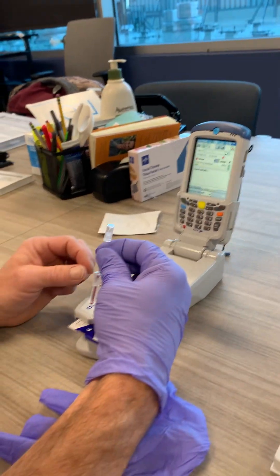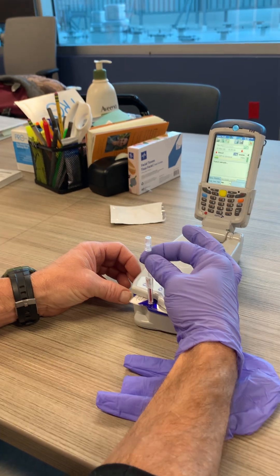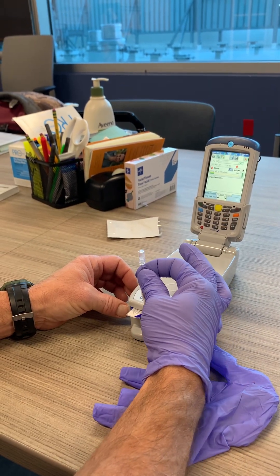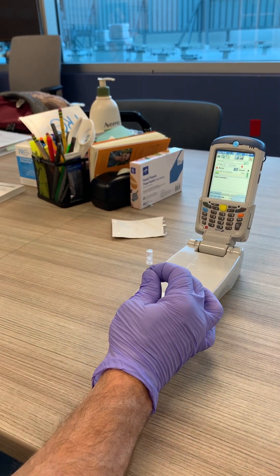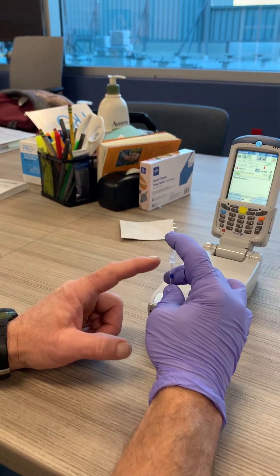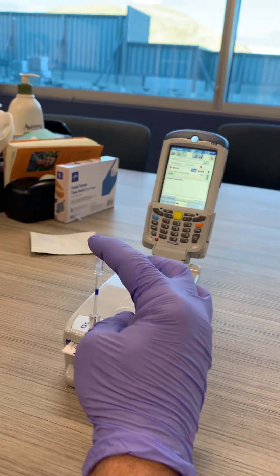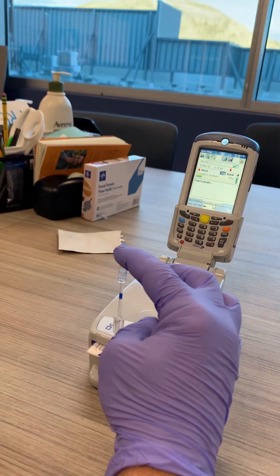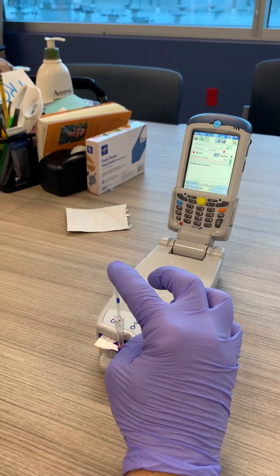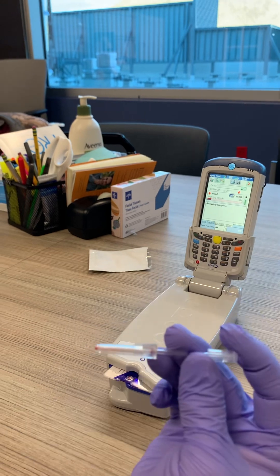Here's the important thing on how the plunger works. We're going to do it just like a regular syringe — seat it here in the EPOC card and give it a little bit of a turn to help it seat. Now the plunger is the important piece: as you start to depress it, the plunger will help advance the blood. And boom — you'll hear it beep, and then the blood should be gone and in the cartridge.